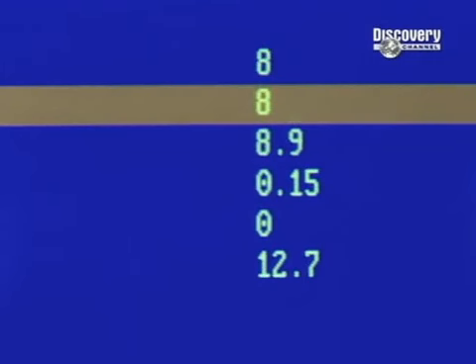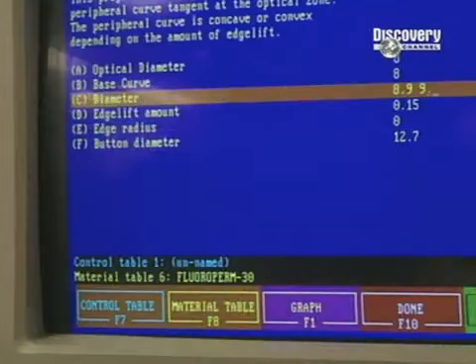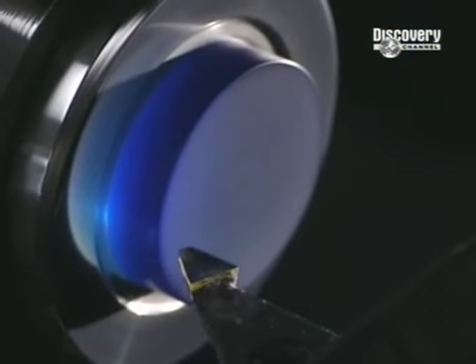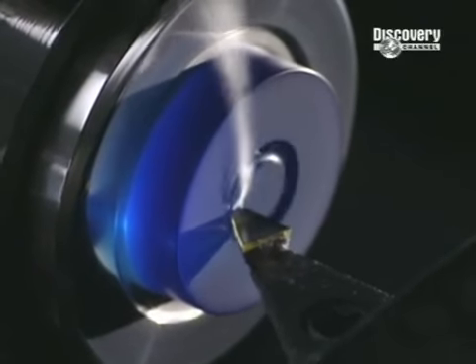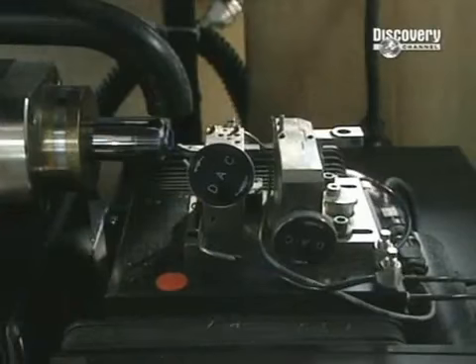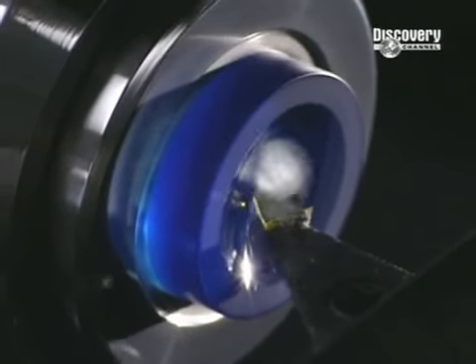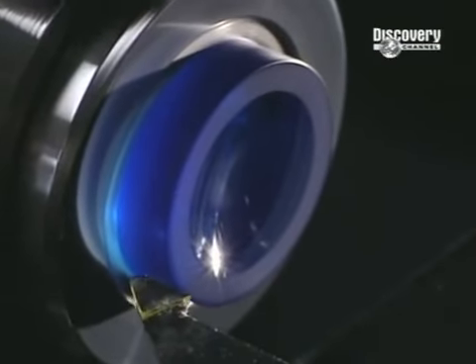The first stage begins with the data processing control of the shaping. The lathe commences by shaping the inner curvature of the lens. Rotating at 6,000 revolutions per minute, it's armed with an industrial diamond and shapes the inner surface — the part that touches the cornea.